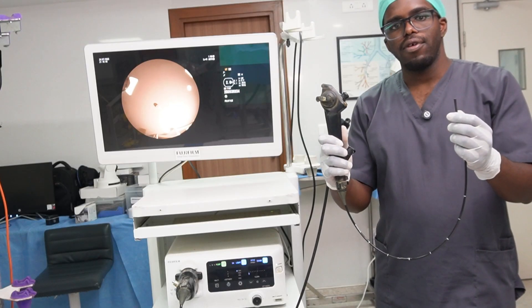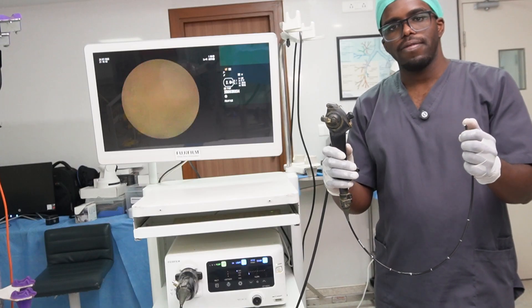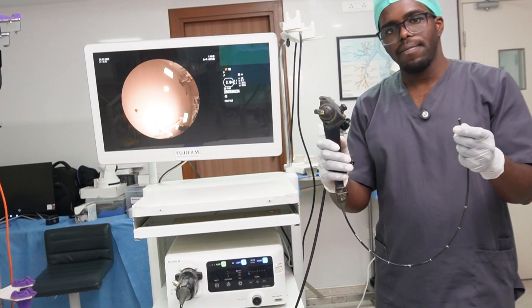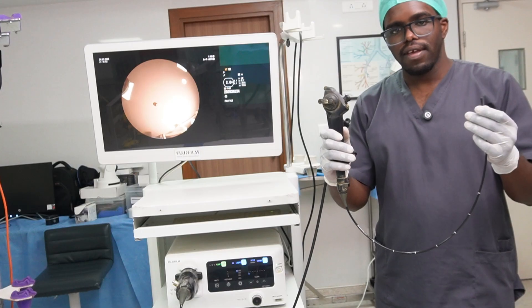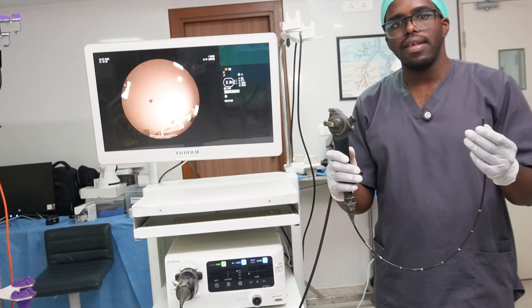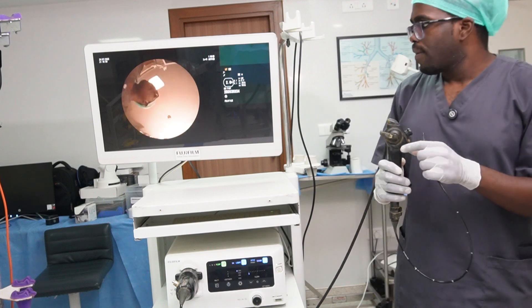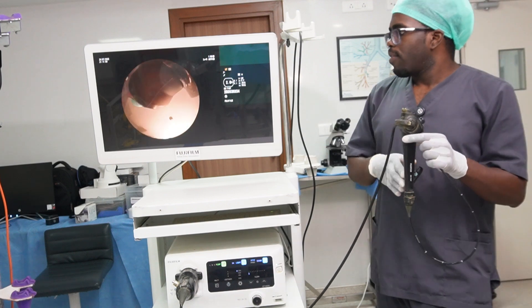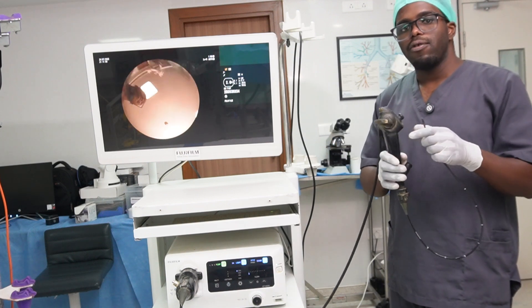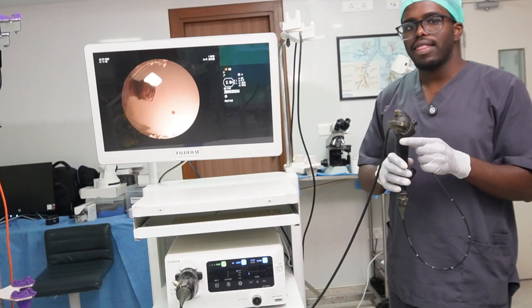This is a bronchoscope from one of the manufacturers, Fujifilm — it's a thin-size bronchoscope, specifically the EB-710P. This is the monitor where the doctors will be able to visualize the airways as they go down inside the lungs.